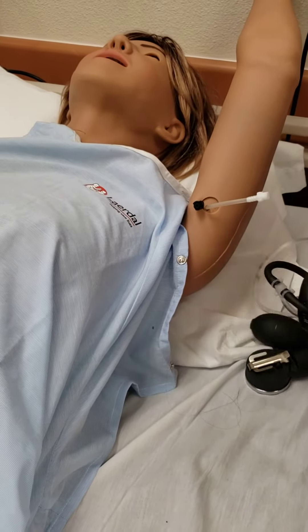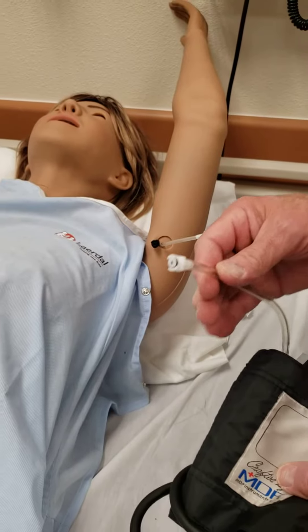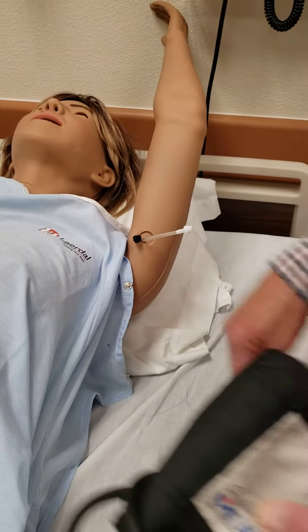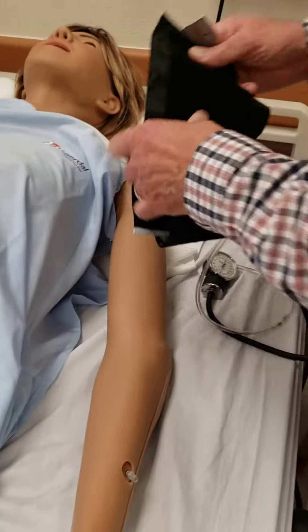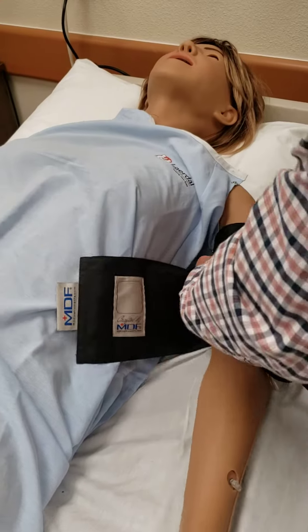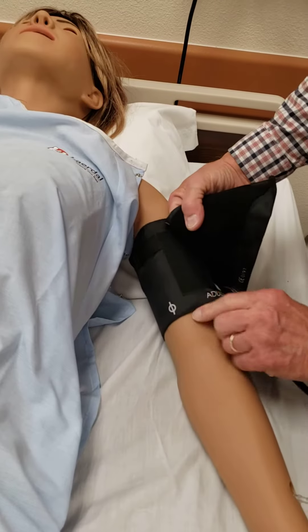You want to match up the connector with what you have, and for blood pressure, it's white to white. What you can do is put the blood pressure cuff on the arm first — the easiest way to do that, as you would any conventional blood pressure cuff. Seat it on here and wrap it around so that it's in the spot that you want it to be.